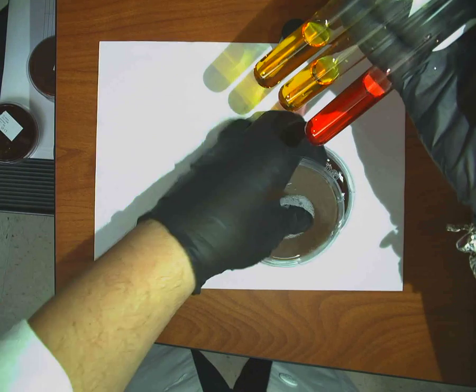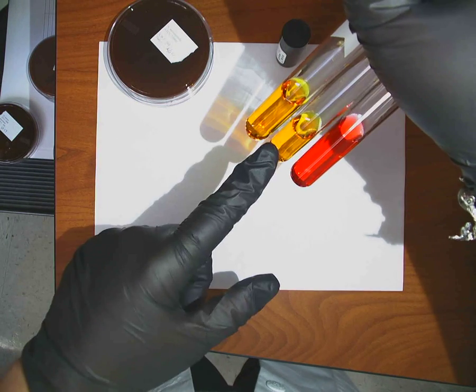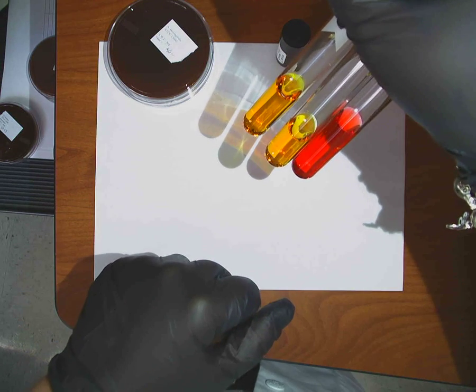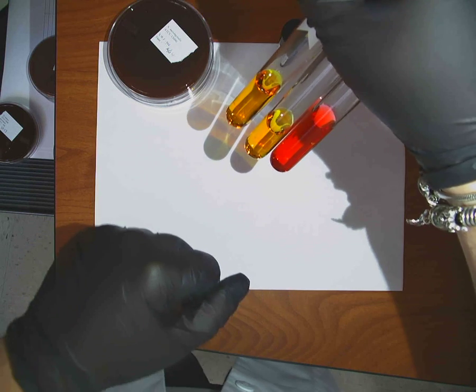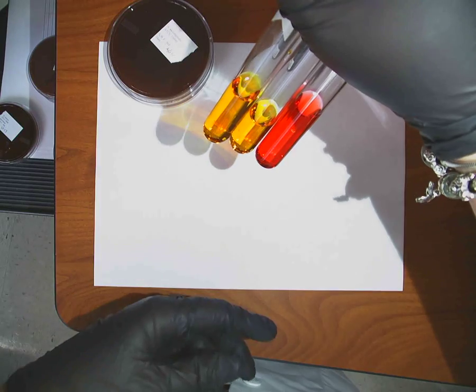So, your sugars, that's what you'll get. And they'll be labeled. Glucose, maltose, and sucrose. Because Moraxella is negative for all of those, right? Moraxella is negative for all of those. I'm not going to have you doing DNase testing on these. You could play with these tablets, but during the practical, you're not going to have that. You need to know the reactions of them, okay?